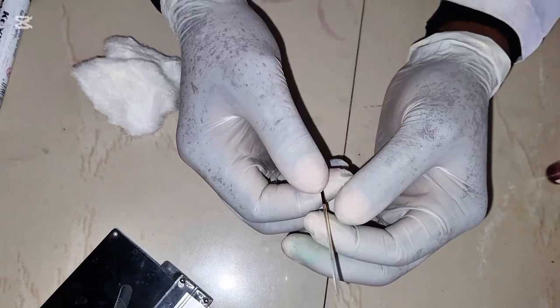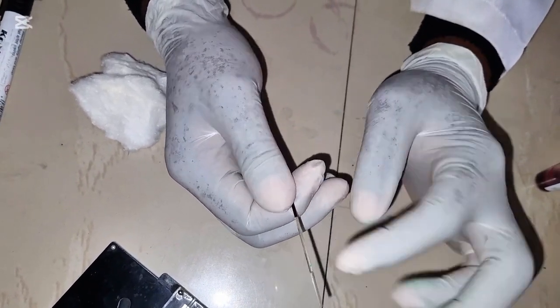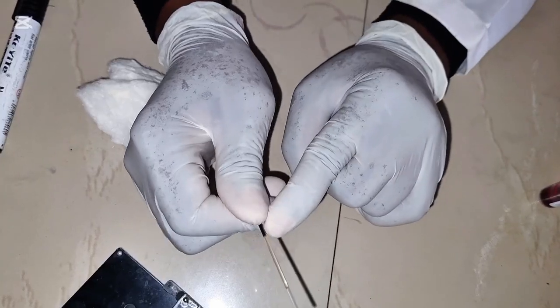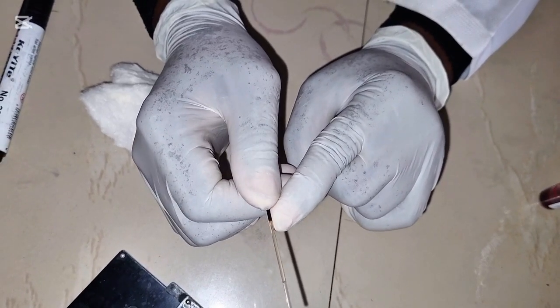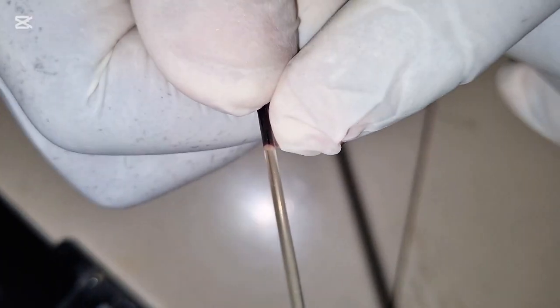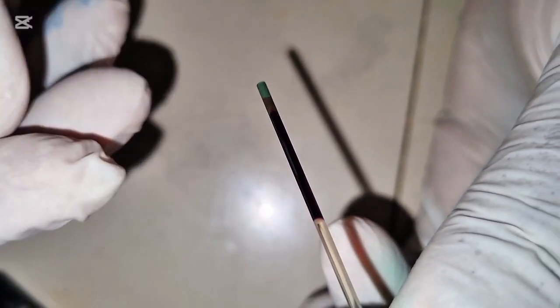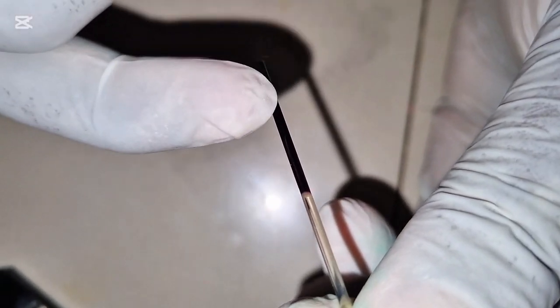So this is how it looks after spinning. So this is the plasma part. You see this white part here is called the buffy coat. It contains the white blood cells. If you look carefully, you see the white part just on top before you have the red cells. So you see the cells are packed. You see where they derive the name from? Packed cells.